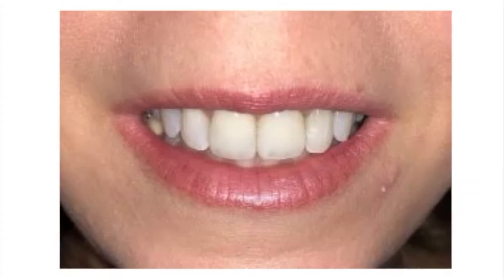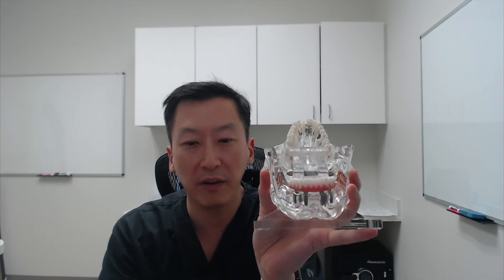Hopefully this quick video illustrates how we can use dental implants in many different applications — whether to replace one single tooth, use two or three implants to anchor a dental implant bridge, or place four to six implants for a full arch prosthesis. If you have any questions, please come in for a consultation. We'll be happy to do a complimentary 3D scan and consultation to go over your options and see if you are a candidate for dental implants and which option might be best for you.